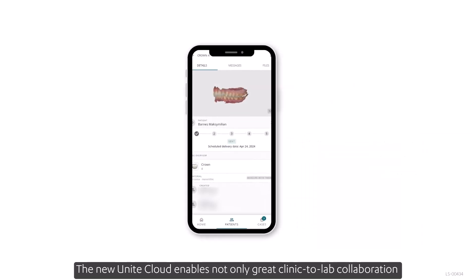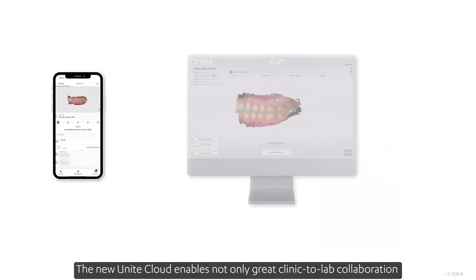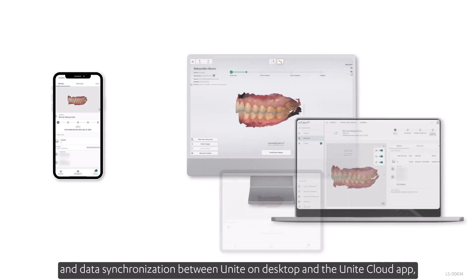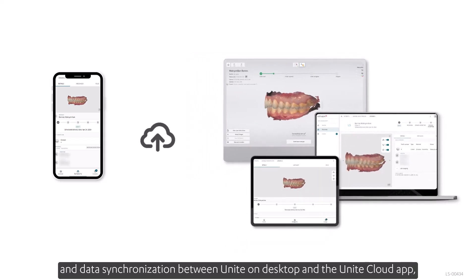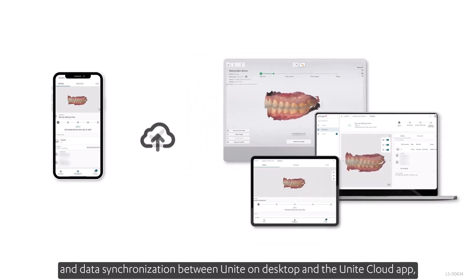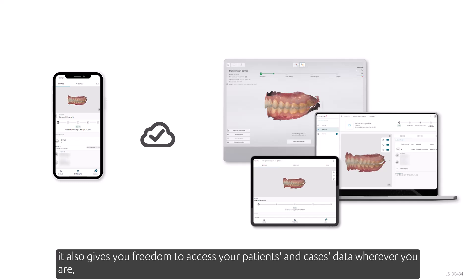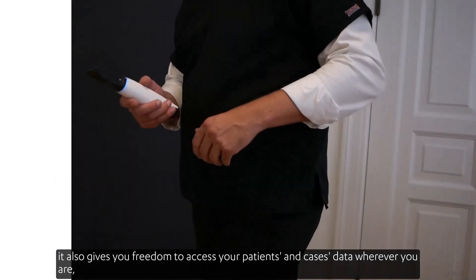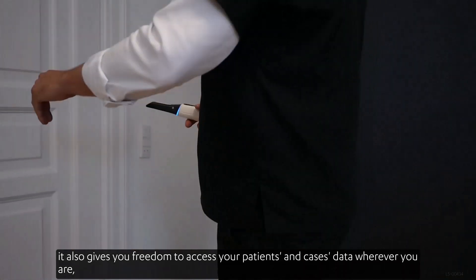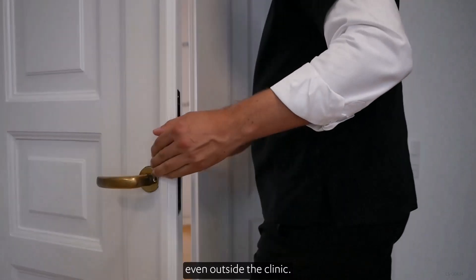The new Unite Cloud enables not only great clinic-to-lab collaboration and data synchronization between Unite on desktop and the Unite Cloud app. It also gives you freedom to access your patients' and cases' data wherever you are, even outside the clinic.